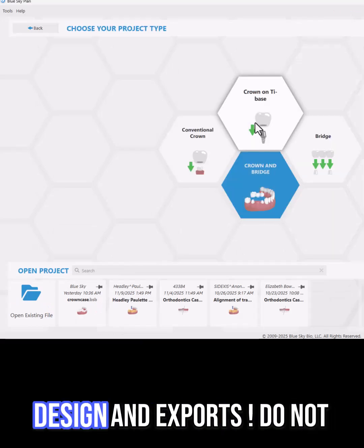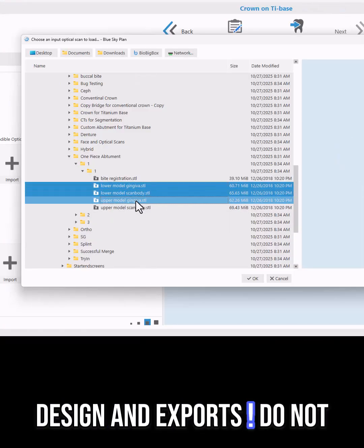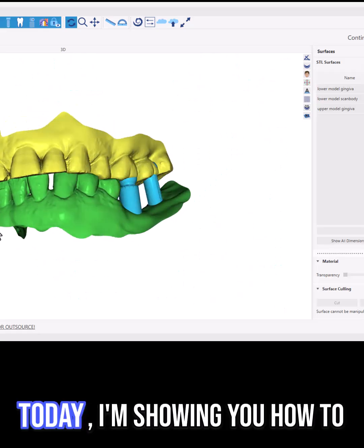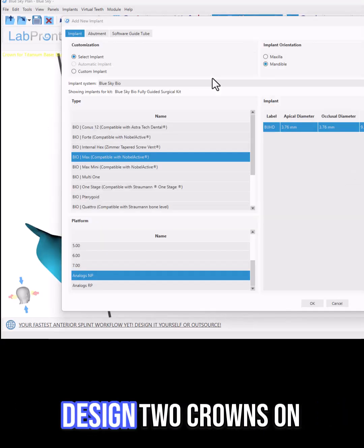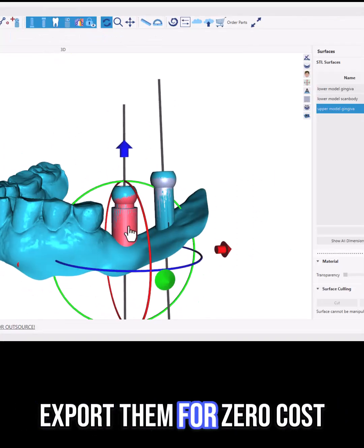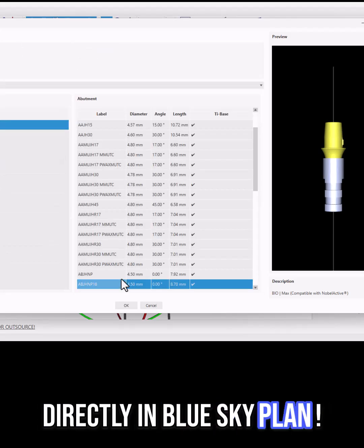Stop paying for your crown design and exports. Do not buy expensive software. Today, I'm showing you how to design two crowns on titanium base abutments and export them for zero cost directly in BlueSkyPlan.